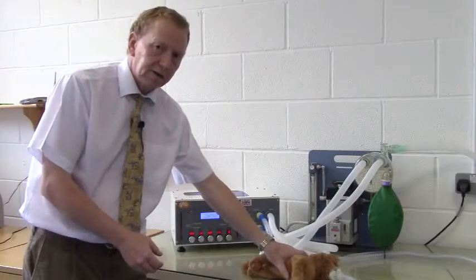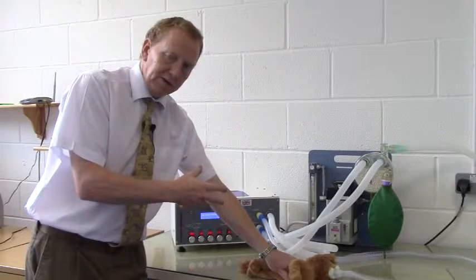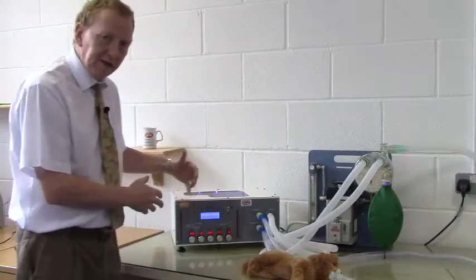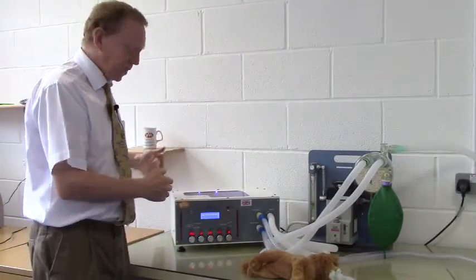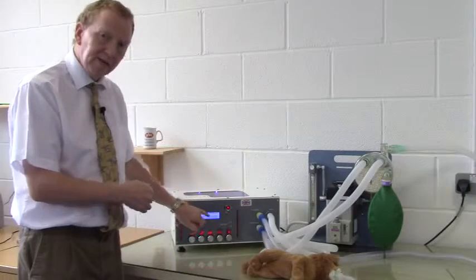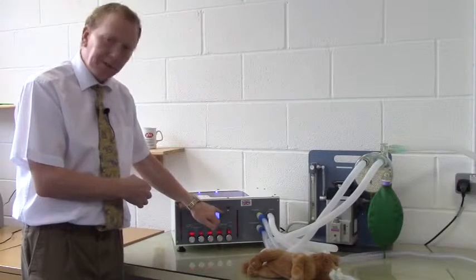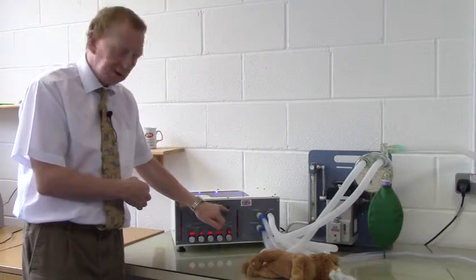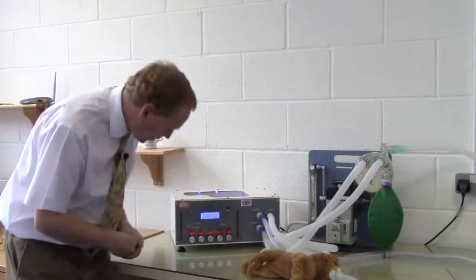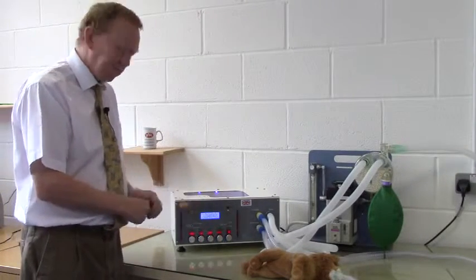So if I am to occlude this now and restrict movement of the chest, the 150 mils is delivered into a smaller volume, and so the alarm will sound because the pressure will rise. In that instance, the piston will stop going forward, come back and try again. You'll see that the alarm maximum pressure exceeded has appeared on the screen and will not be removed even though the ventilator is ventilating normally until that maximum pressure exceeded warning has been recognised and reset by pressing the alarm reset. And now we're back to where we were, an airway pressure maximum of 11 or 12 and a respiratory rate of 15.